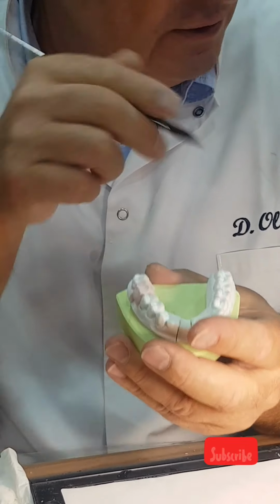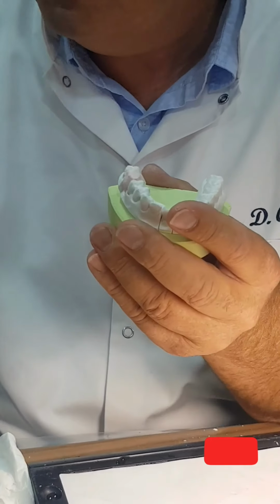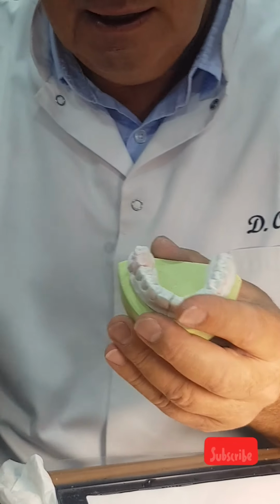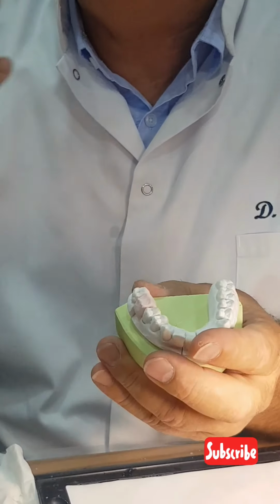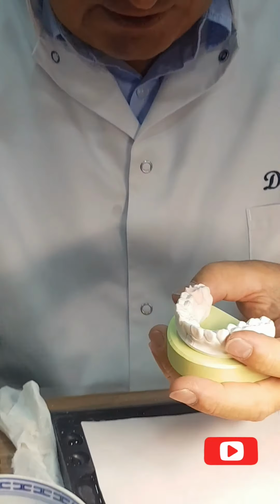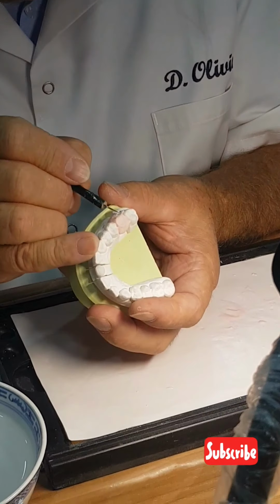It's like for the young lateral. Here, look at the finesse of the dentine. So the light is working inside, outside. It's not only a problem of shade, of color. It's a problem of, here I organize the light. Reflection. Look, more details to finish.